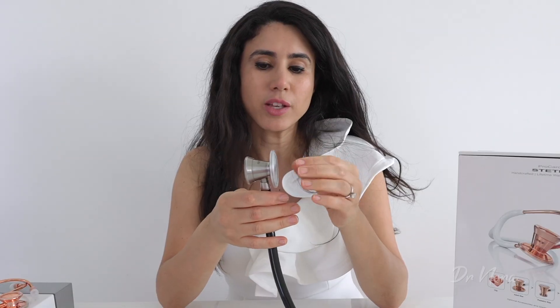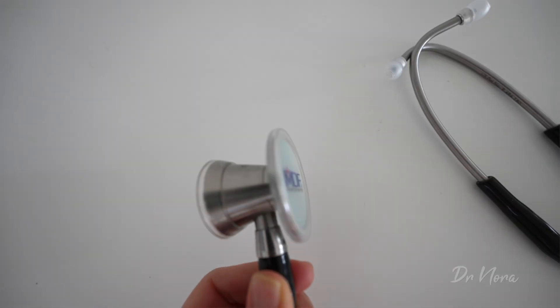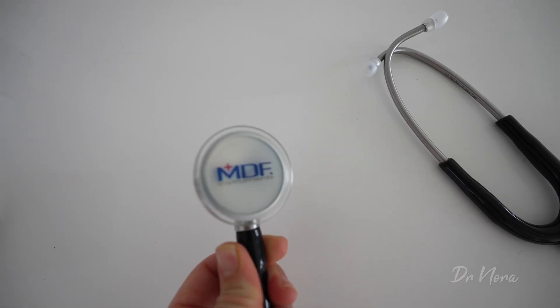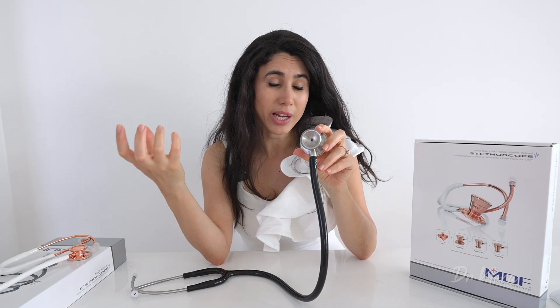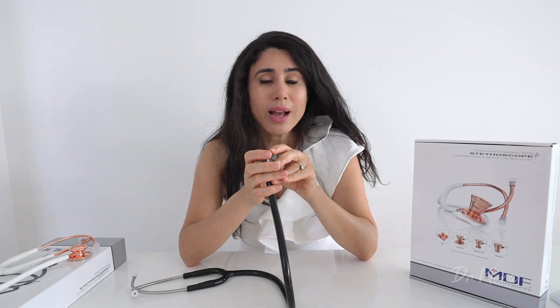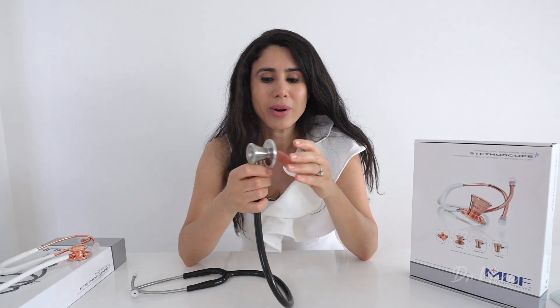You may not get as good sounds using the adult chest piece for pediatrics versus the dedicated pediatric one, but it would certainly still work. Looking at the chest piece in more detail, the diaphragm is quite large and it has a really deep bell, which is designed to amplify sounds more clearly. I'll be doing a series of videos comparing this to the Littmann Classic 4 and Classic 3 so you can see which has the clearest heart sounds.